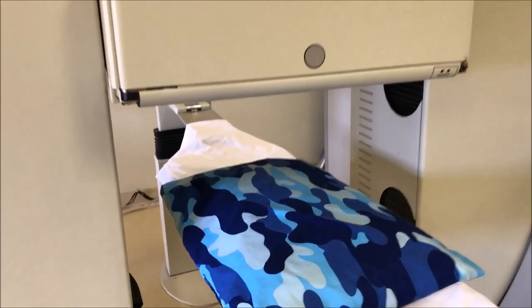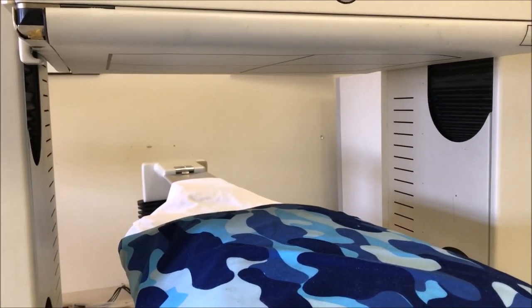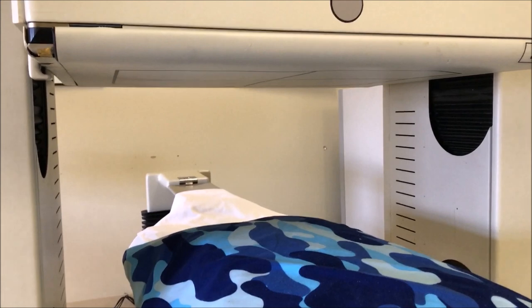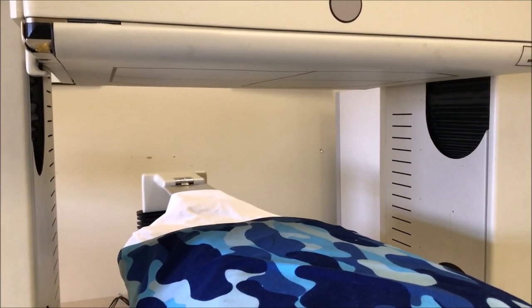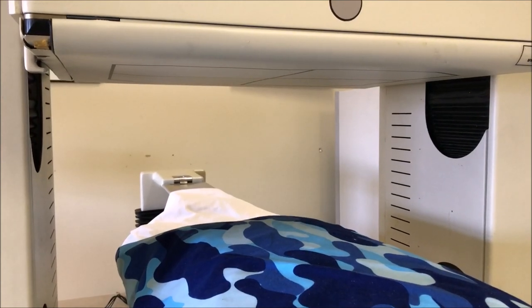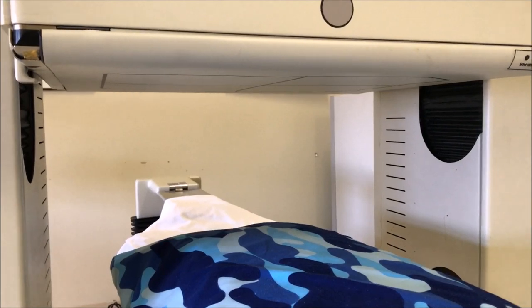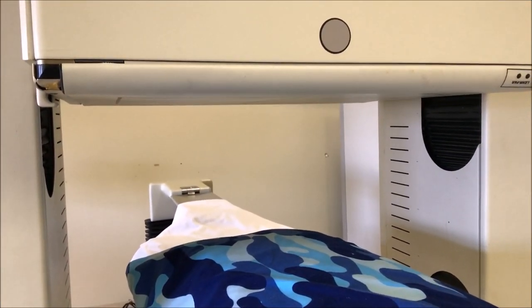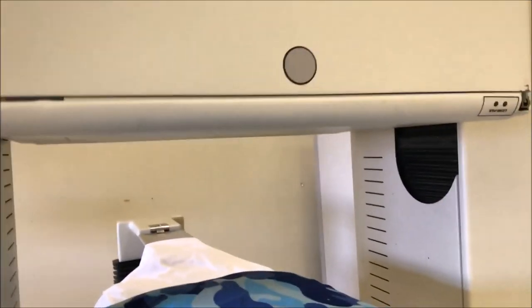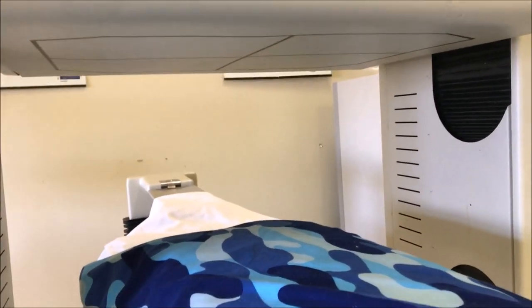If this pillow here represents the patient and we want to image what's coming out of the patient, it's really important to keep in mind that if we just randomly take photons coming out in all directions, our image is not going to be very successful. So what we need to do is ensure that when we've got the camera positioned anteriorly, the only photons we detect are those coming out perpendicular to the gamma camera itself.